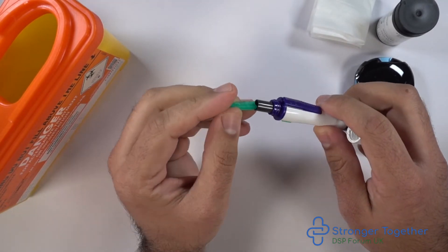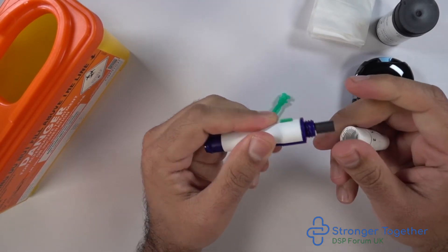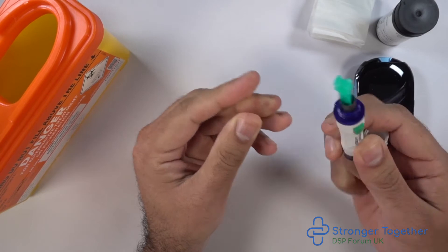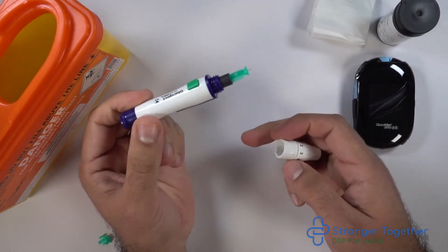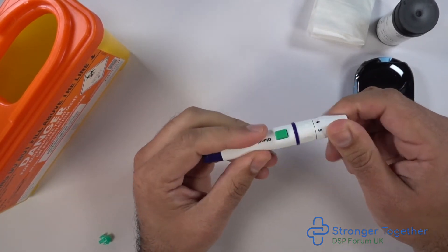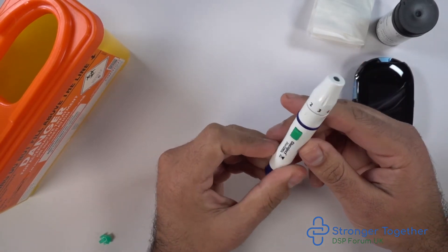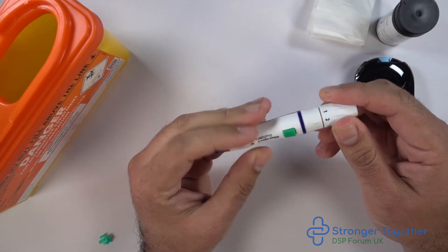You can see here the lancing device. Unscrew the end in an anti-clockwise direction, then push the lancet in as far as it can go. We then twist off the protective end of the lancet, which exposes the needle within. Now screw the end of the lancing device back on in a clockwise fashion, ensuring it's hand tight. We then set the depth of penetration — as you can see there are numbers on the end, and in this instance we've set the depth to number two.